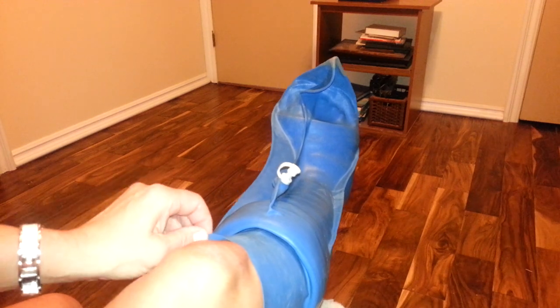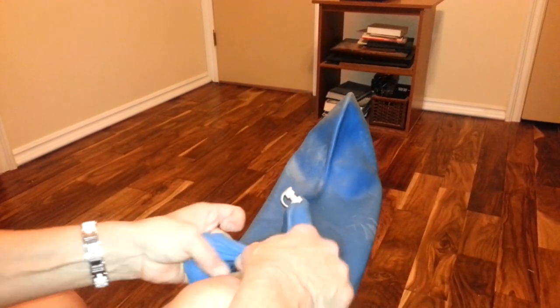The way it comes off — when you want to take it off, you just pull it up. It brings all this extra air in. It is snug to get off, but it doesn't rip. It looks like this afterwards — it's really big, but you would never know its size when all the air is out of it.